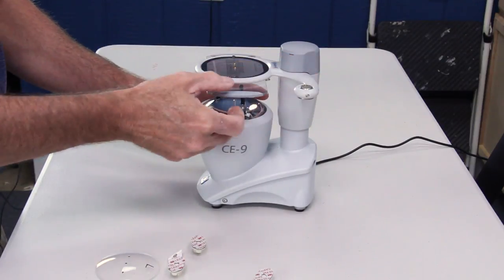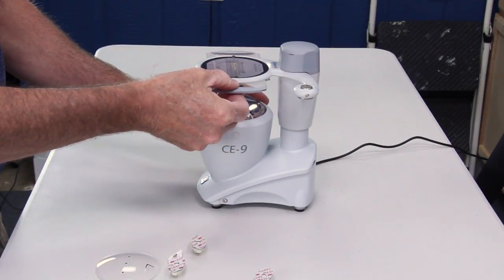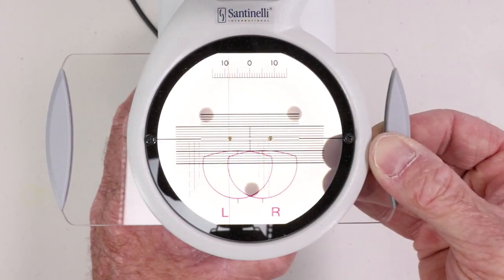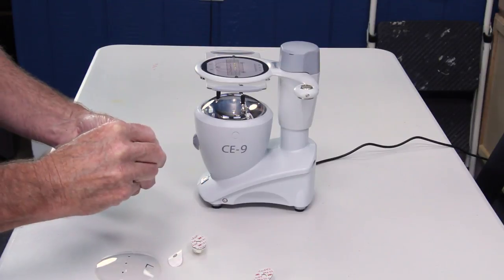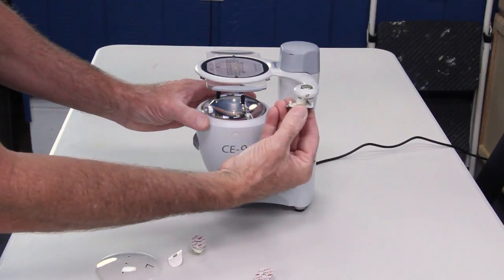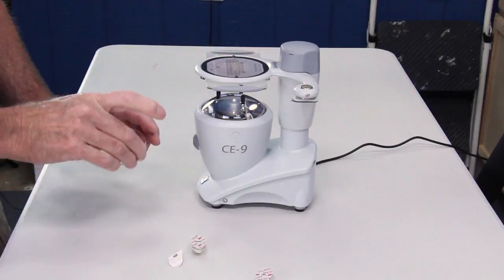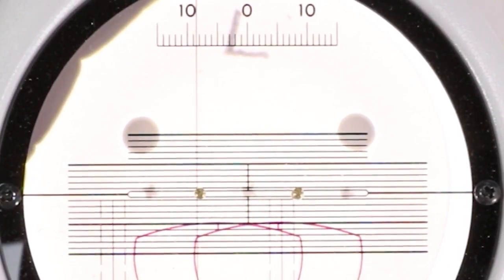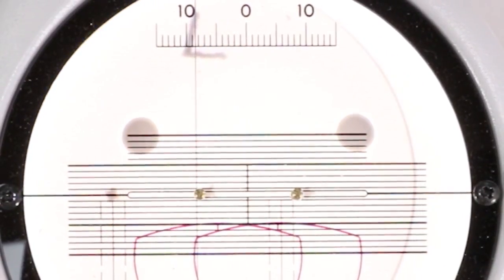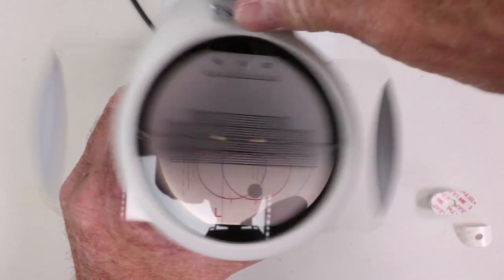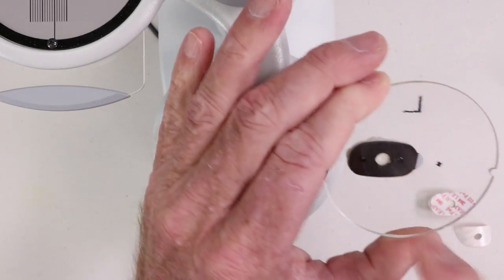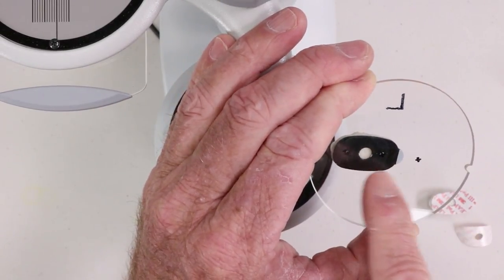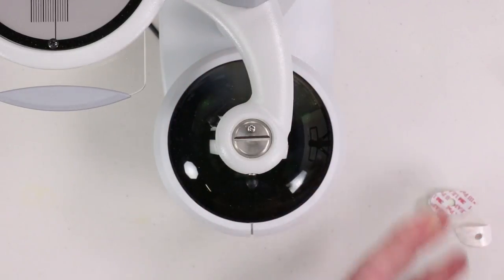Let's do the same for the left. That's five, six, seven, eight and a half. Beautiful. Let's stick a block in there. Take my left. That would be on center, zero. I'm moving it over my eight and a half. Beautiful. Stick my block on. Sure enough, there would be the center of my eye wire opening. There's my OC shifted nasally in my left.